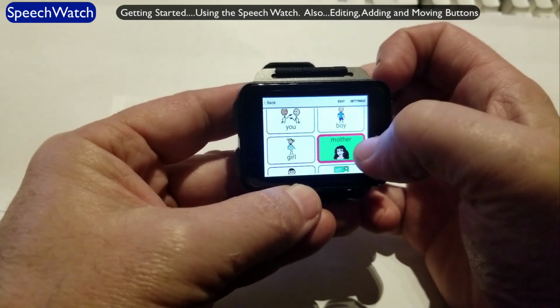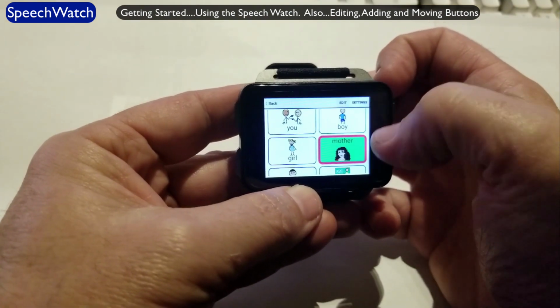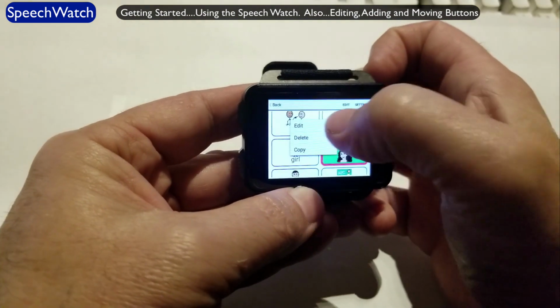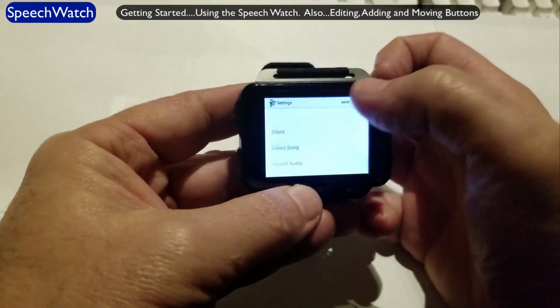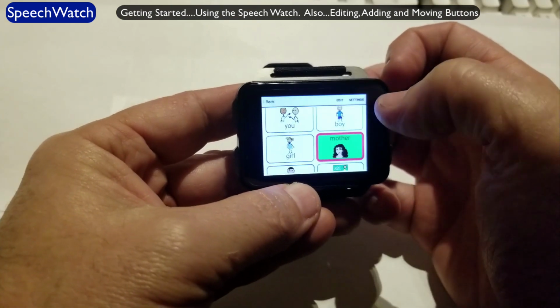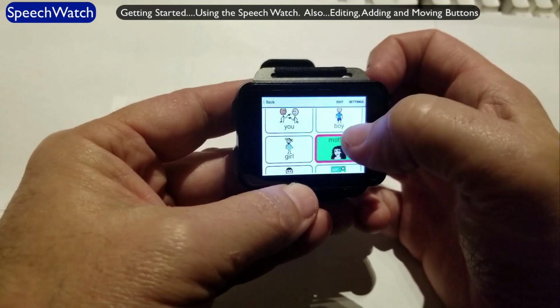Okay. Now, if I decide I don't like something about that, at any time, just simply touch the edit button at the top, touch the middle of the button. It's the same with every button. Go into edit and make whatever change you want. Simple, simple. Very intuitive. Next thing I'd like to show you, that's how to edit a button. Let's show you how to add a button.